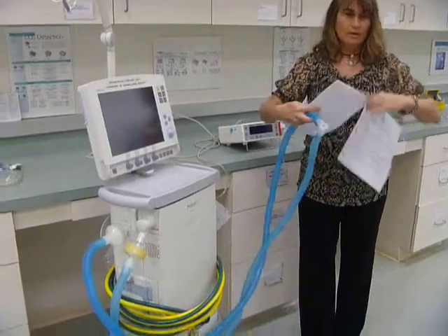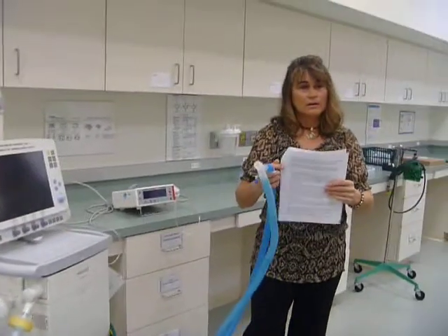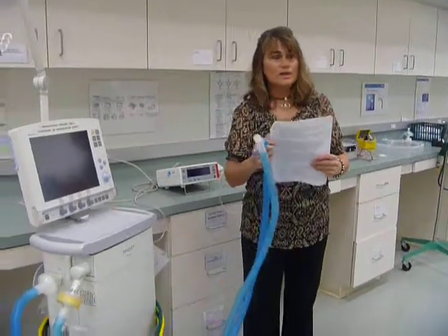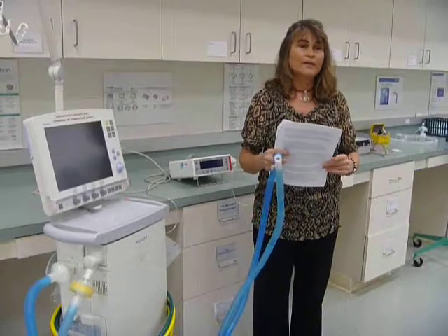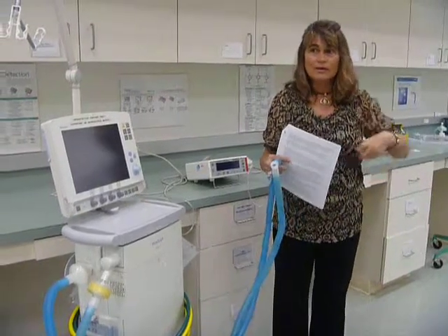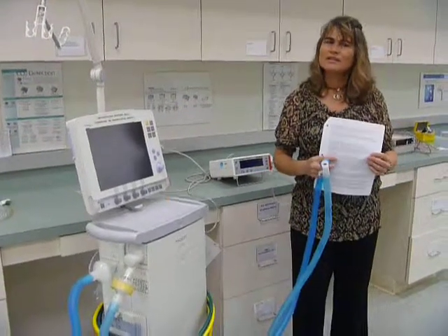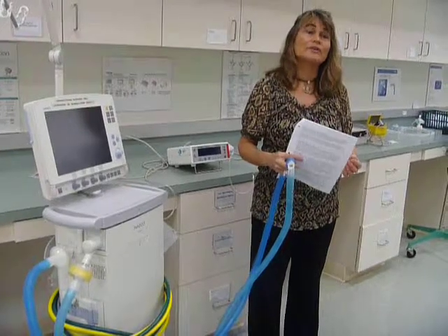Well, it needs electricity, no? It's also electricity in there. You don't want water in there. The transducers have electrical current, yes. So if there's water in there, could you get electrocuted? I don't think so. Never heard of that happening. I just know that it doesn't function properly.